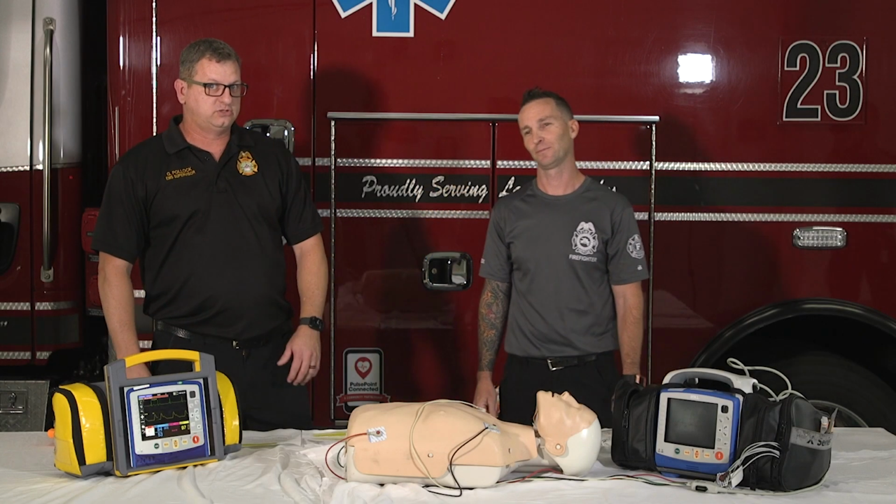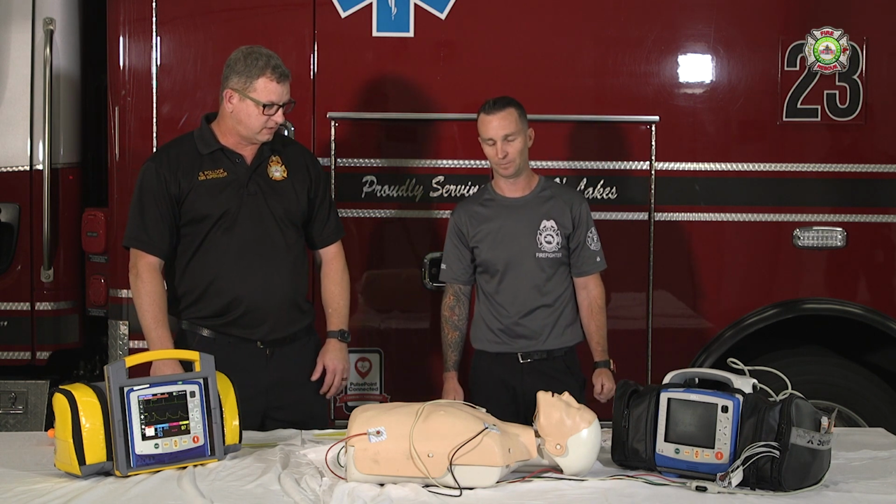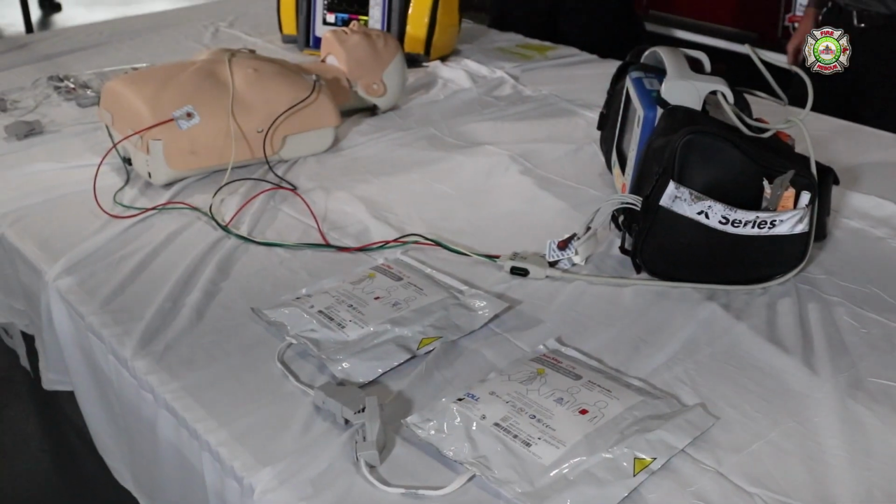I'm Greg Pollock, one of the EMS Supervisors. And I'm Justin Neal with the Training Division. We're going to be videoing how to properly pace and also show you guys the different type of pads we'll be getting.